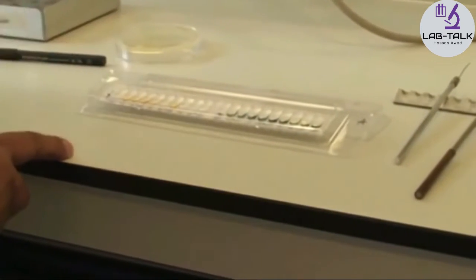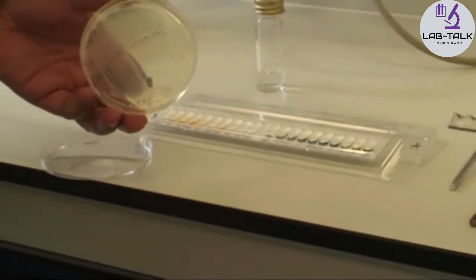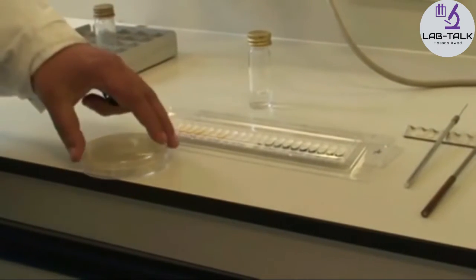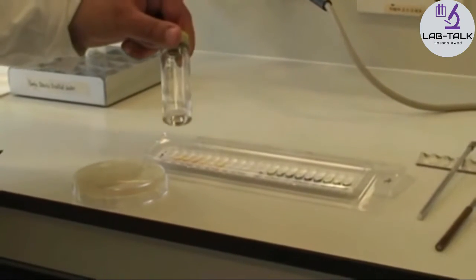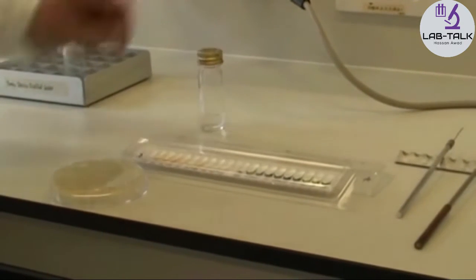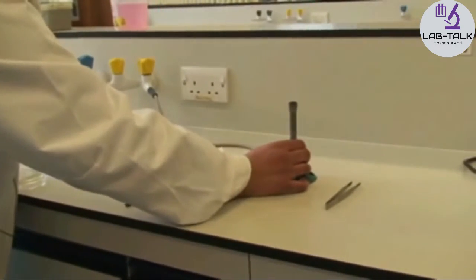Place the strip at a slight angle. Next, take one colony and inoculate it into five mils of sterile distilled water, then use that to fill all the cupules across. Move the Bunsen flame to its hottest flame.